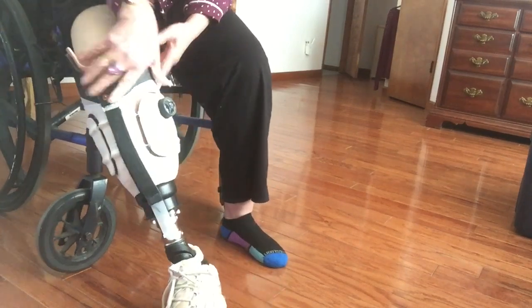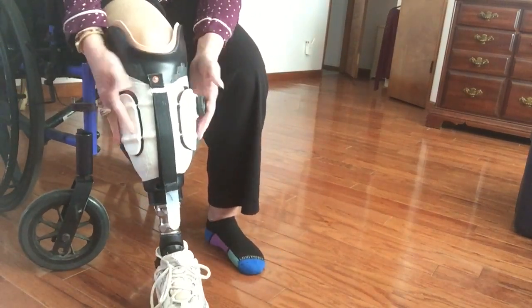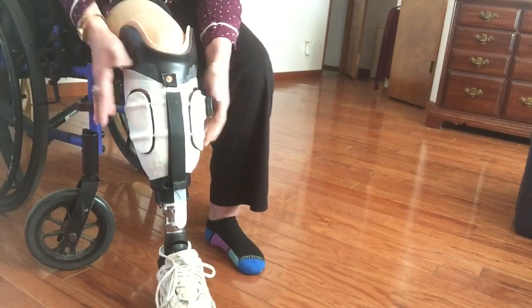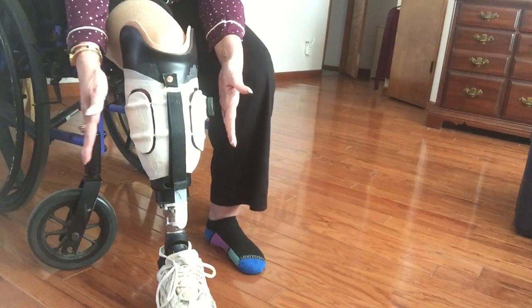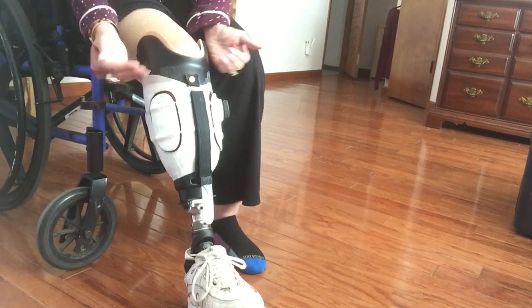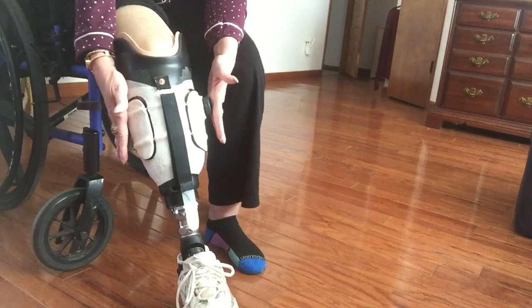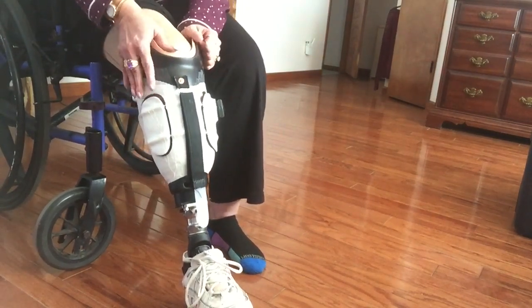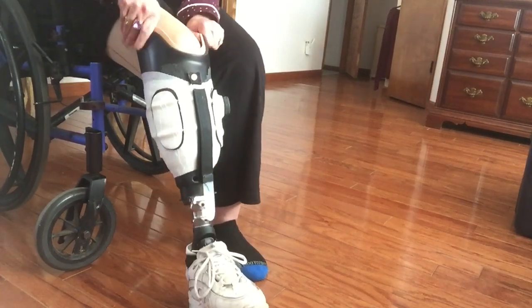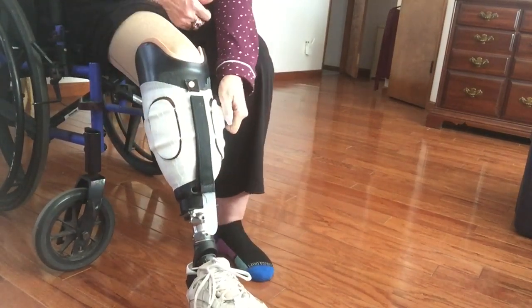When this knob is put over here, can you see the width? Way too wide. And with these panels they stick out a little bit, which changes the width of the leg. I may have to get pants or jeans — that's what I'm hoping for soon. They don't make hardly any jeans this wide in the calf or the knee. So with my dirty little mind, I decided to call this the 'strap-on and squeeze leg.'